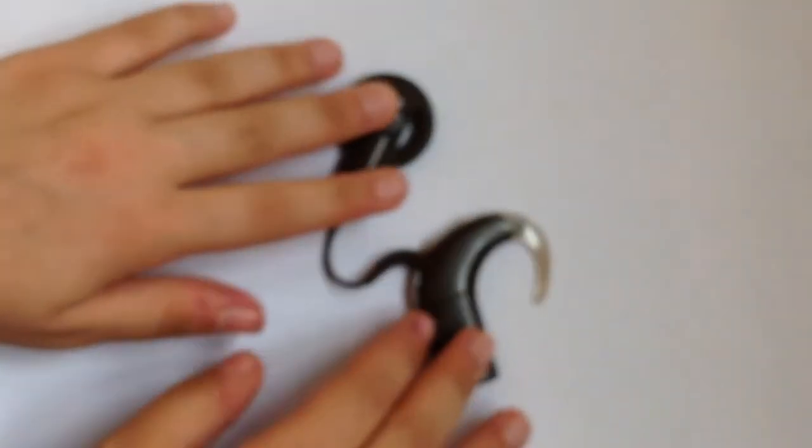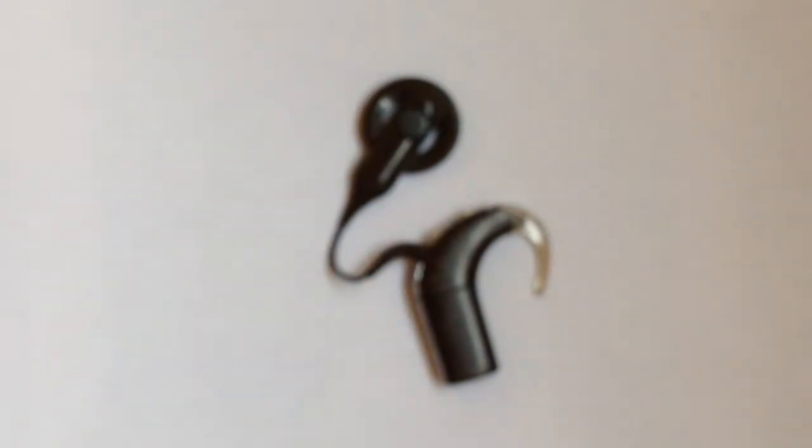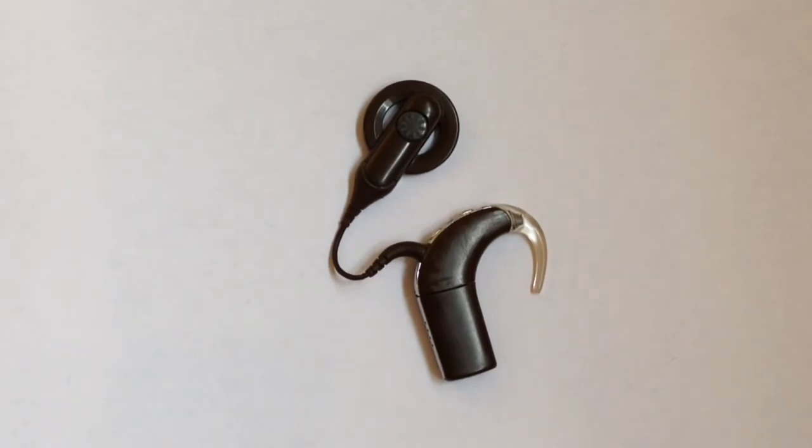In fact, I've had this cochlear implant for seven years. And I'm still, as you see, not a hundred percent professional at this because I do not ever need to take the hook off. I know I keep repeating myself, but I just feel like I need to tell you guys so that you don't feel like you need to always replace your hook.